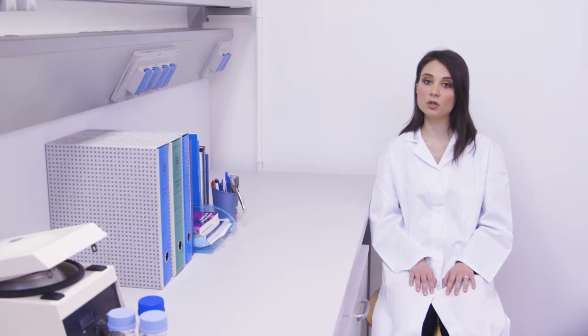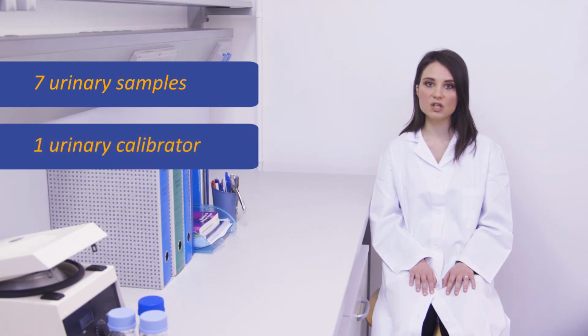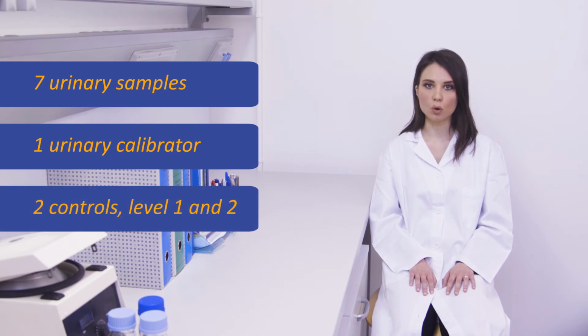Let's take as an example an analysis session of 7 urinary samples on which to perform the 1,2-cyclohexanediol dosage. Together with these samples, we will also analyze a urinary calibrator, which we will use to automatically build the calibration curve on the software, and 2 level 1 and 2 urinary controls that will be useful to check the calibration curve and therefore the whole analytical session.